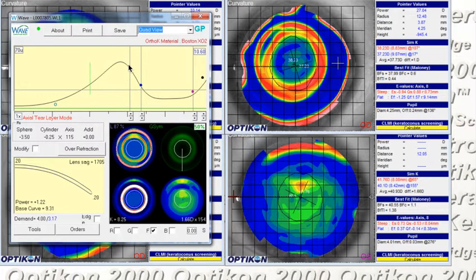If we also wanted to enlarge the optic zone of the lens to give ourselves a little bit larger treatment, I would recommend increasing the size of the lens first, the overall diameter. It's a fairly large cornea, about 12 millimeters across, so we can probably add an entire millimeter to this lens, go all the way up to an 11.6.